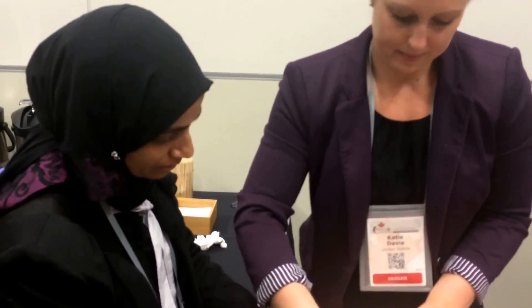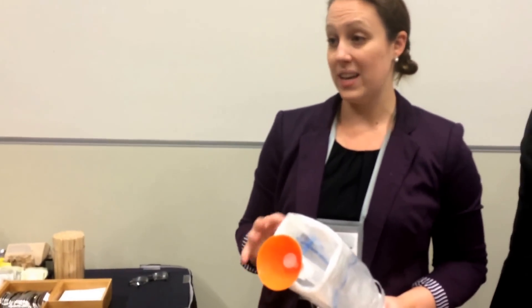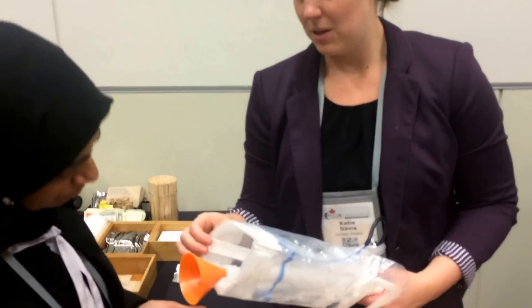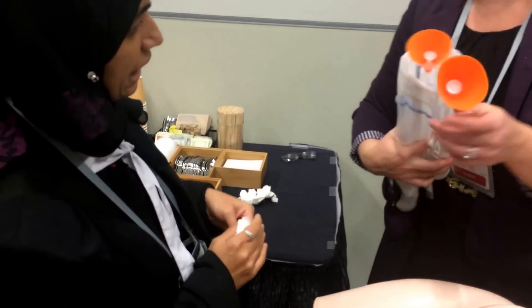What about lacerations over the face and the position of the head — one part going in the front of the baby? There are four — two are going in here and two are going here. What about her eyes? There are a few fields we've been studying closely. In the first 48 cases, they've looked very closely at the baby and there's really been no marks, scratches, or anything significant. Part of the reason is because the spatulas are covered by the sleeve, so it's not against the baby — it's within the sleeve.